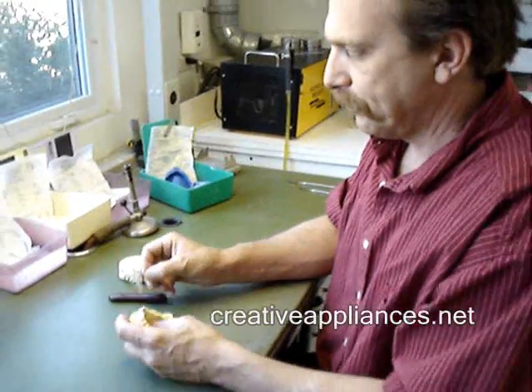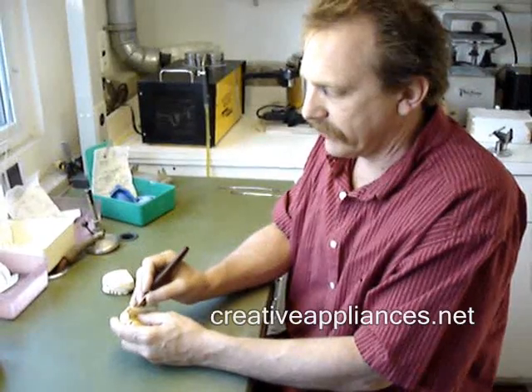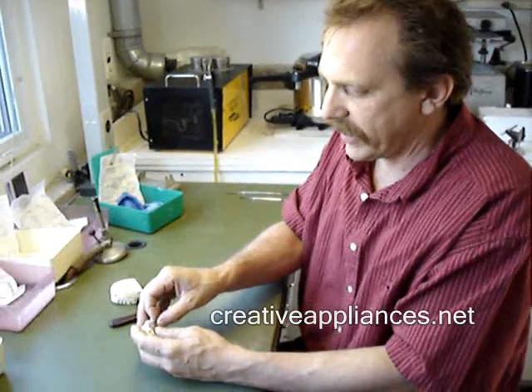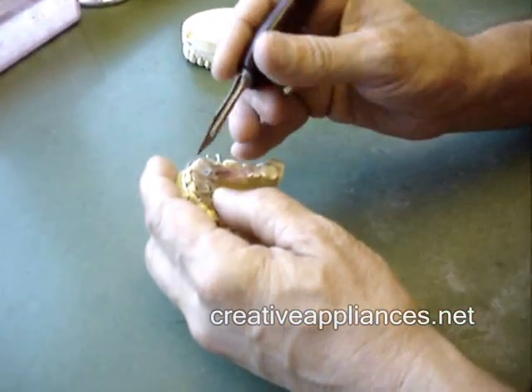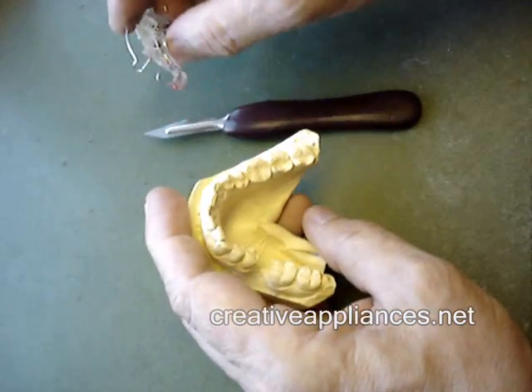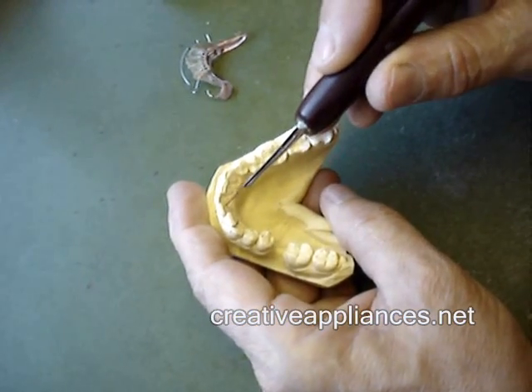She's got one tooth of the four anteriors that is in the perfect position. Using that as a guide, we've worked around it with various orthodontic techniques — single tooth expansion screws on both of the laterals, because those are the most severely displaced, and an S spring on the left central.